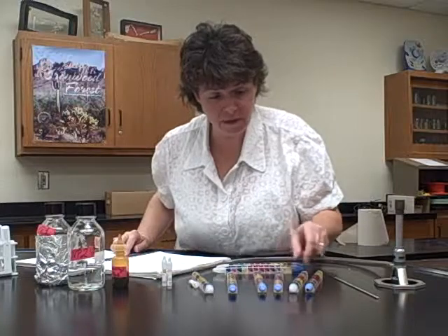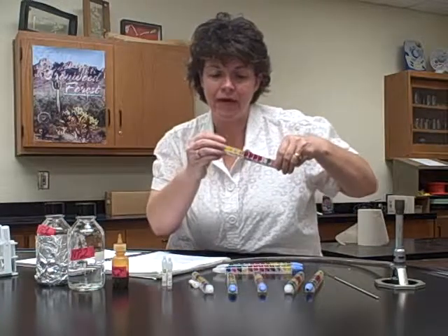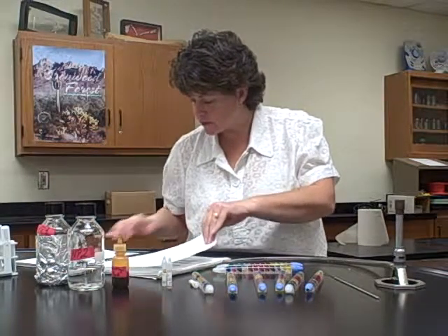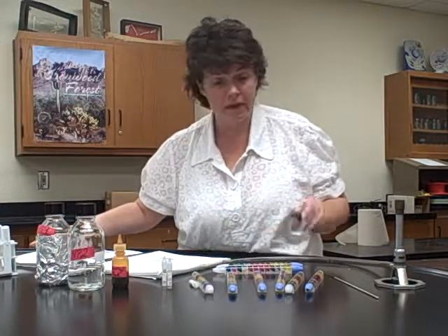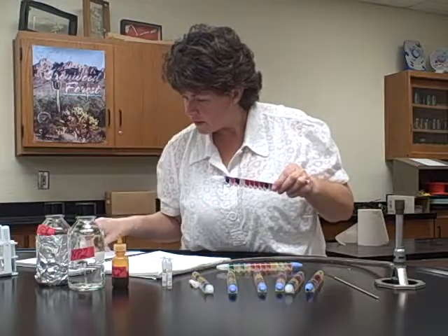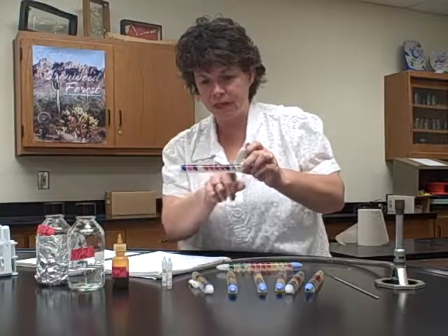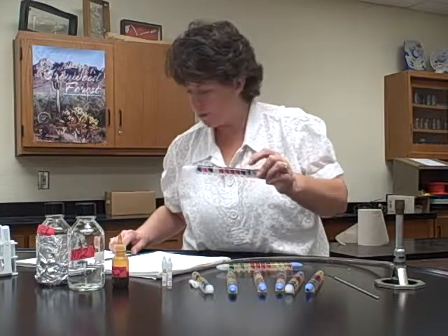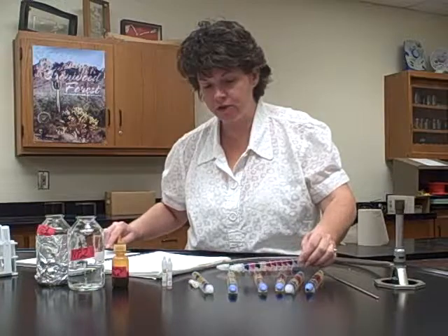You will notice that all of them at the very least ferment glucose, so the first number will always be a 2 or a 3. It'll be a 3 if you had gas, a 2 if you only had acid. Then the next one, the lysine, and the next 3 compartments, the next 2 would turn purple if they were a positive result. Like this one, the first one's negative, the second one's purple, and then the next one has the black precipitate. So this one was negative for the 4, so you don't circle the 4, positive for the 2, the purple one, and then positive for the 1. So circle the 2, circle the 1, 2 + 1 is 3. You put that number in, and you just keep going along.